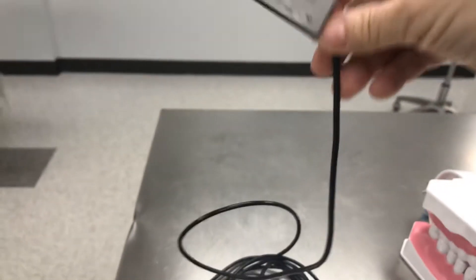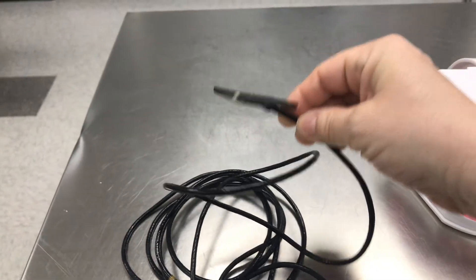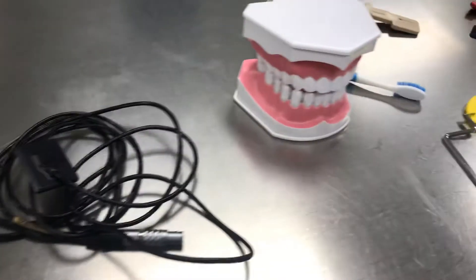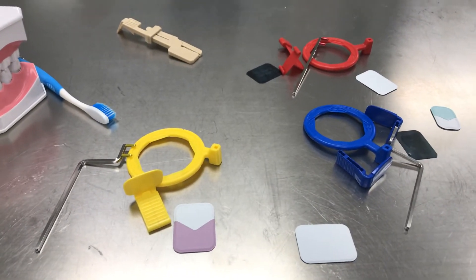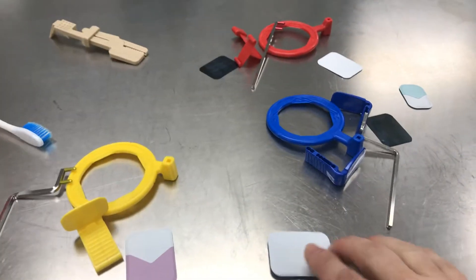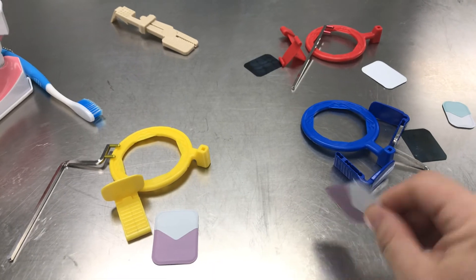All right. So this is an example of a digital sensor. We call them sensors, and this is kind of the old-fashioned way. We used to take x-rays, and we'd develop them, and they'd come out just like taking pictures.